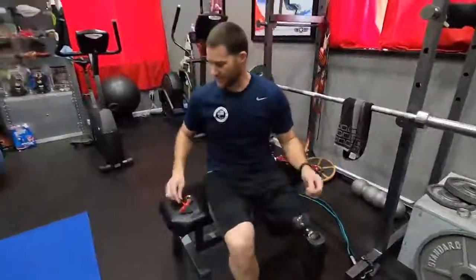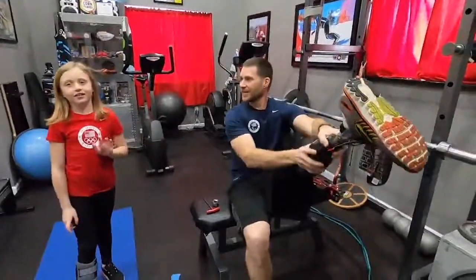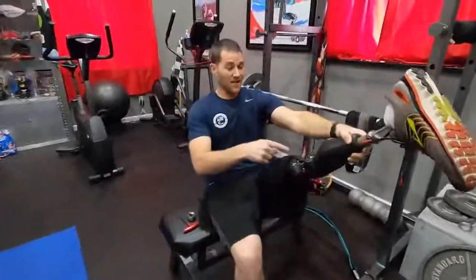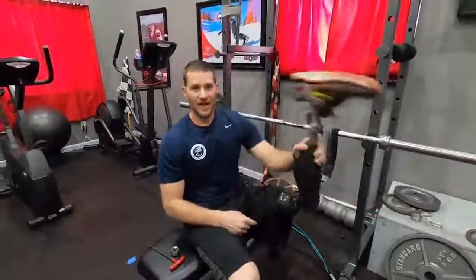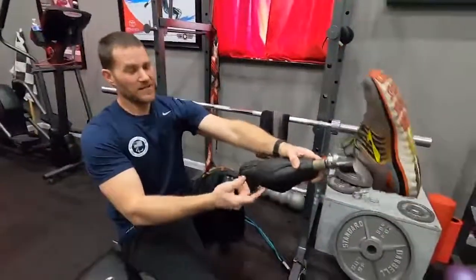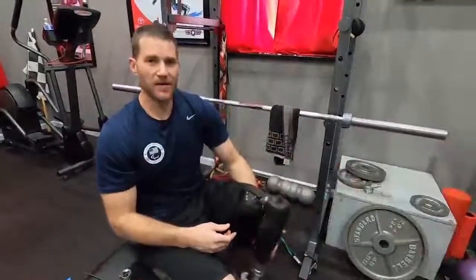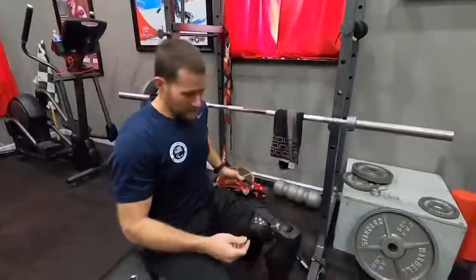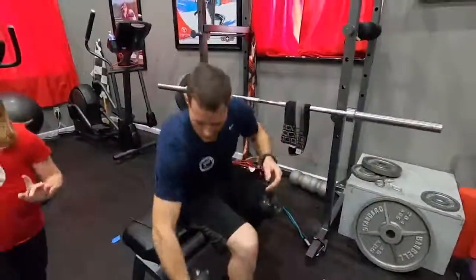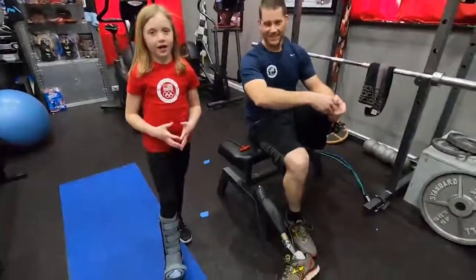What are the rules on the balance board? You have to stay on there for a minute, but if you don't, I add five extra push-ups to the end. Five push-ups — they add up pretty quick! Right now my leg is actually backwards, so I'm taking off my everyday leg. The biggest difference is this one doesn't have any extension assist or spring assist to it — it just kind of swings and flip-flops around. You'll see the difference when I put the other one on.